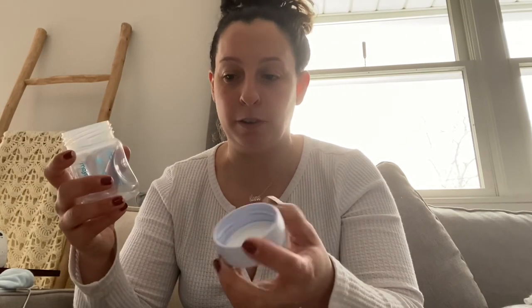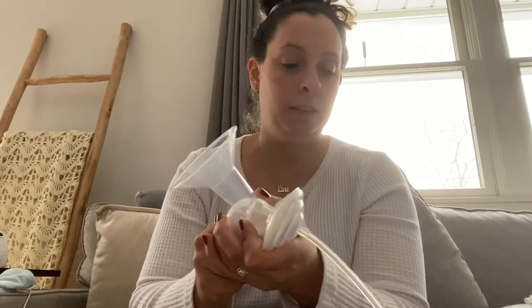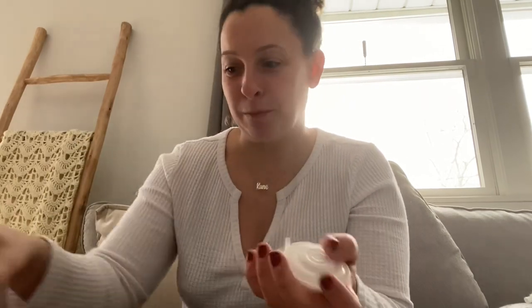When you're taking your system apart, just undo the bottle — be careful not to drop it, nobody likes spilled milk and I have definitely cried over spilled milk. Put the top on, label it, and put it in the fridge, or pour it directly into your freezer bags — whatever brand you have — seal them, label them, and put them in the freezer. I take apart each piece, rinse it under warm water, and let it soak in a bowl of hot soapy water. When I get to it I'll wash it with the bottle brush. Just throw them all in soapy water and wash them when you have time. I'll send you the picture now — let me know if you have any questions.